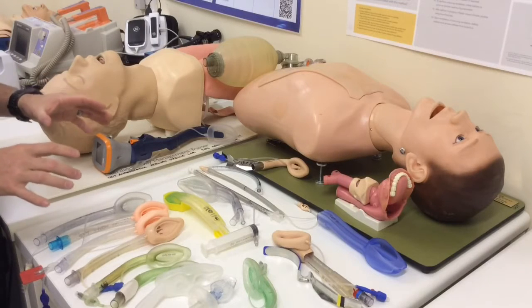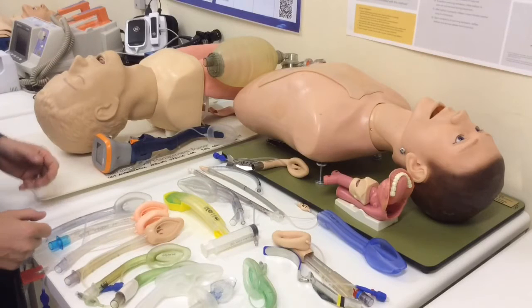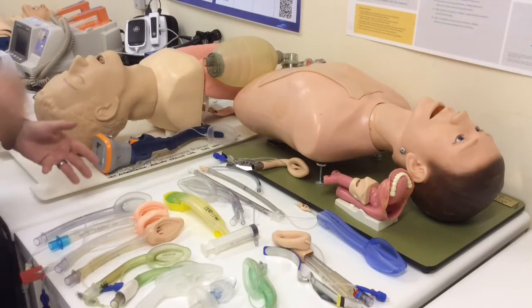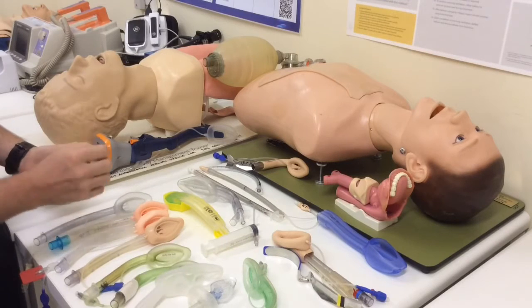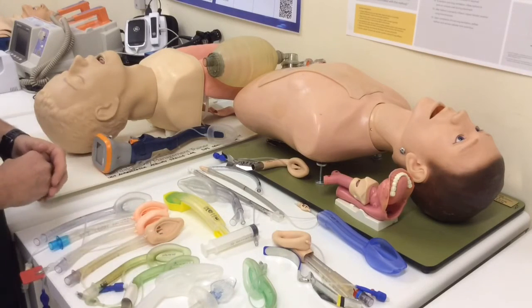You've got to also recognize that there are situations where using a supraglottic is going to be contraindicated, or it's going to be very difficult. And I like the acronym RODS. It's quick and simple, just shoving a rod in there, shoving a supraglottic in. When am I going to struggle? So it's patients with restricted mouth opening, where the mouth opening is not adequate to get the device in, and you recognize you need a couple of centimeters to get one of these devices in.